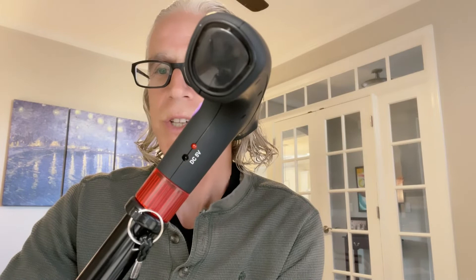Some things I'd like to see on this cane: I'd like it to be longer, have a quad head, have the swivel flashlight easier to use, and have LEDs showing how far along the battery is charged — you don't want to charge something every night if it doesn't need it; it just makes the batteries wear out faster. All in all, this cane has some pizzazz. I can't give it five stars because of those issues, but it's a pretty cool cane and would make a great gift. If you're between five foot four and six feet, it'll fit you well. You'll have a flashlight for opening your car or front door, a red strobe for extra safety at night, and you can fold it up and fit it in your suitcase really easily. So it's decent.